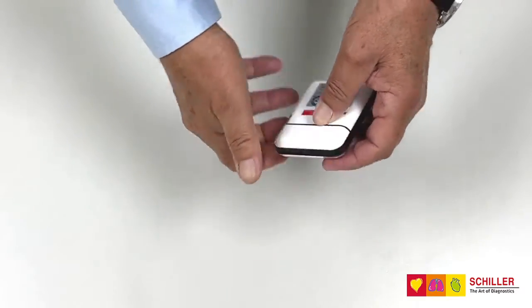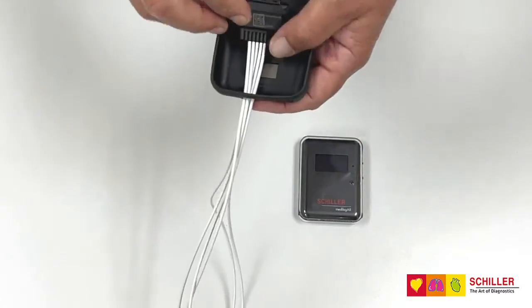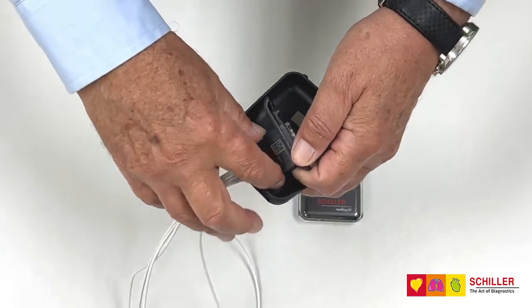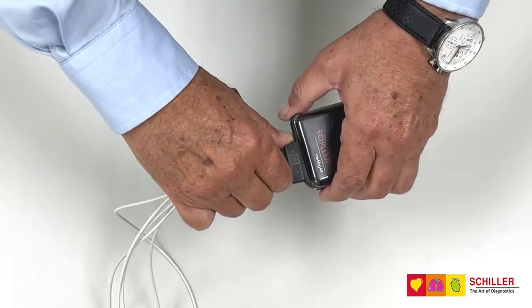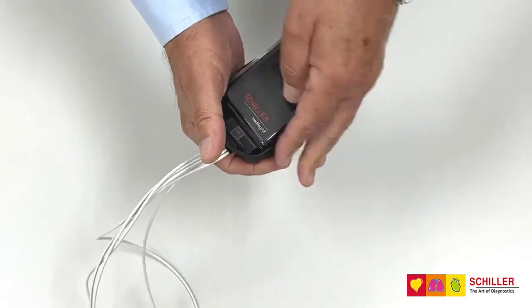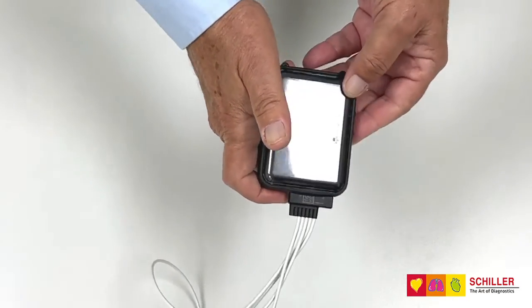Once you've done this, you take the recorder cover. Be sure that the cable is already inserted on the base of the cover, and connect the cable to the recorder. Slide the recorder inside and press any of the buttons.